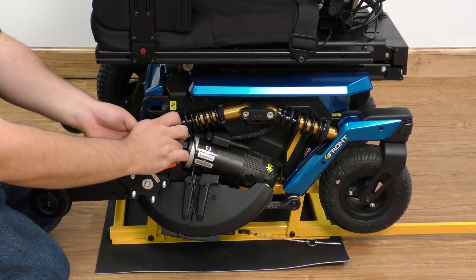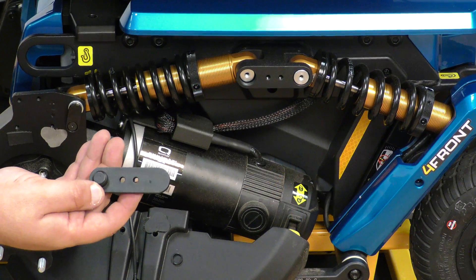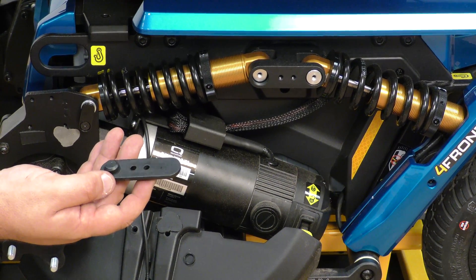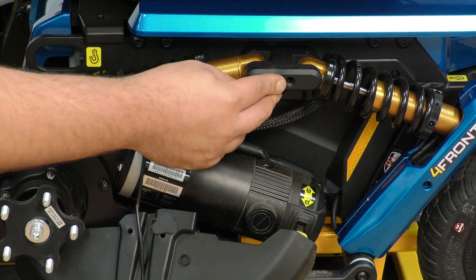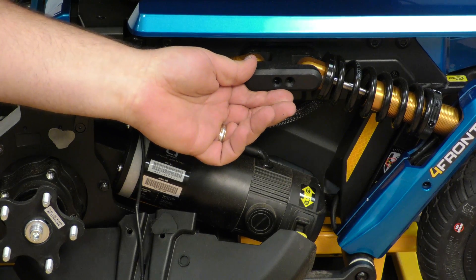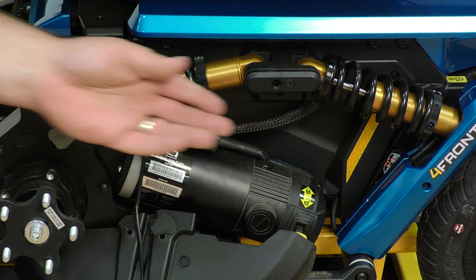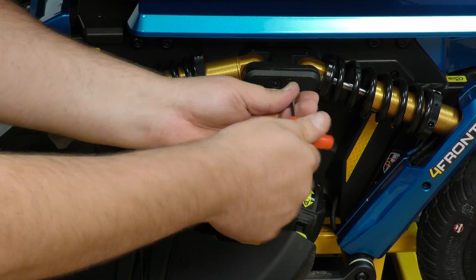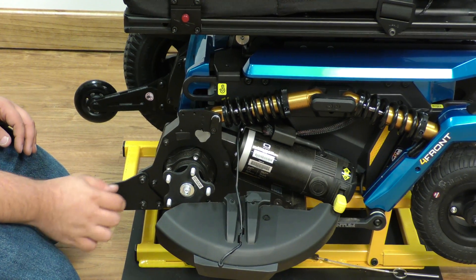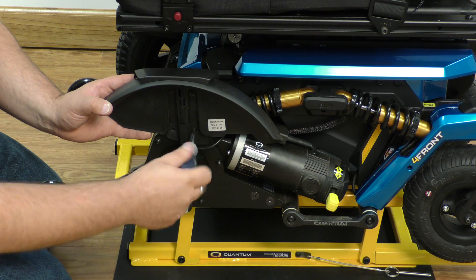The first thing we're going to do is replace this cap. When you replace the front piece, the part with the extrusion will go in the front and just goes right on. Once we're done replacing the cap, we take our fender and put it back into place.